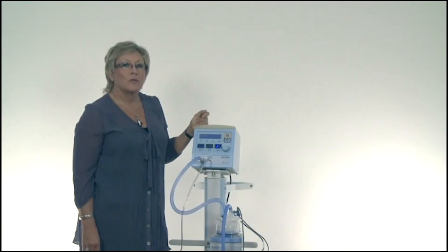The SLE-1000 automatically calibrates the oxygen every eight hours unless a calibration error has occurred, in which case the unit then calibrates every hour. If a difference of 5% between set and measured oxygen is detected, a high or low oxygen alarm is generated.